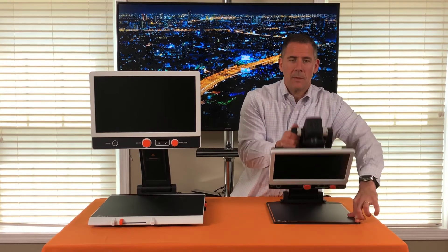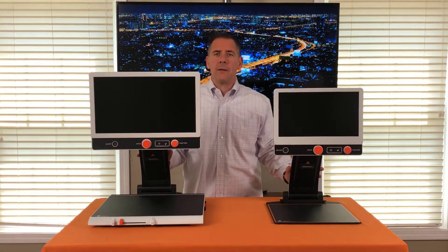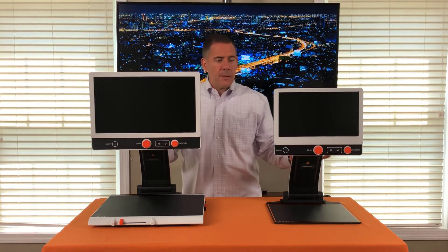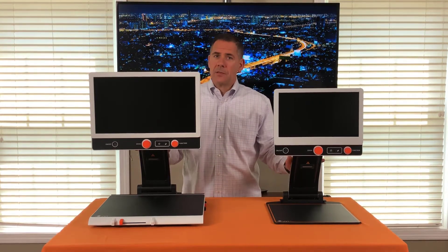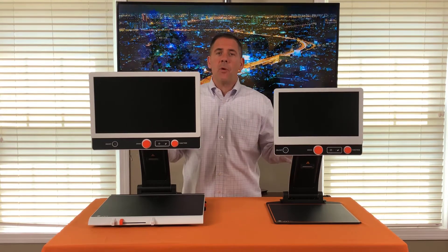Same with the 13-inch system — pull and bring the screen around. They're both ready to be turned on and used. These are wonderful for the classroom; they go from classroom to classroom with ease.